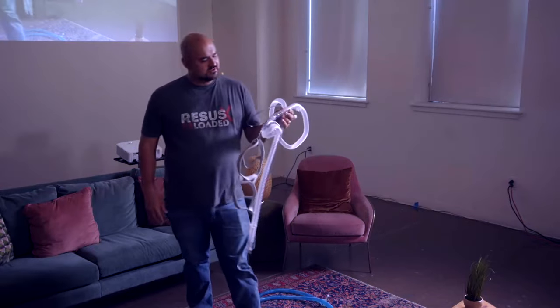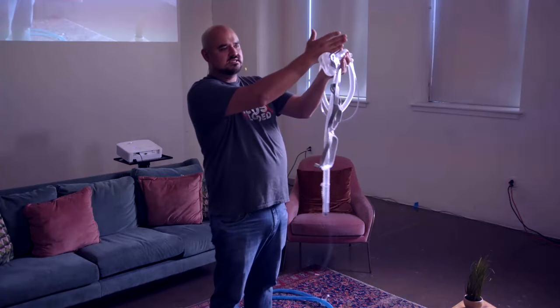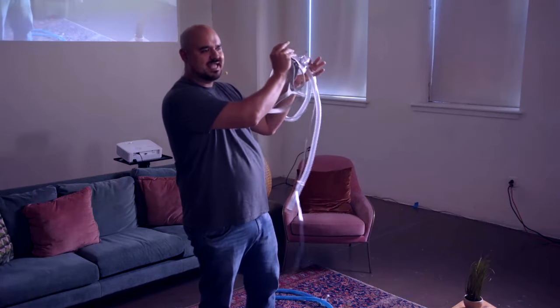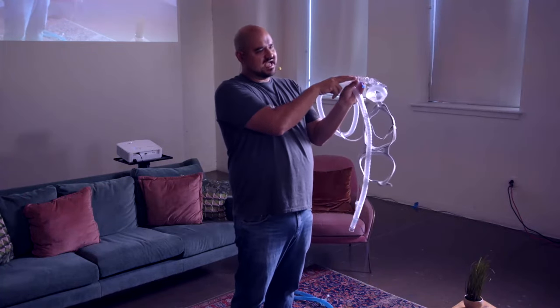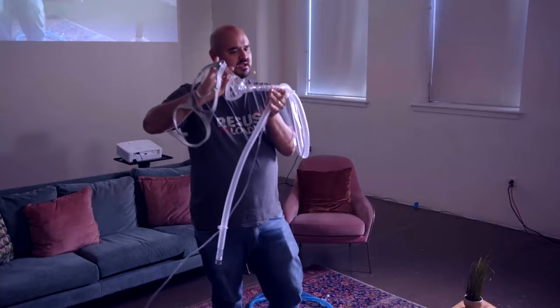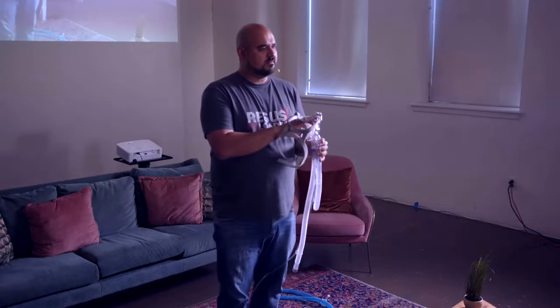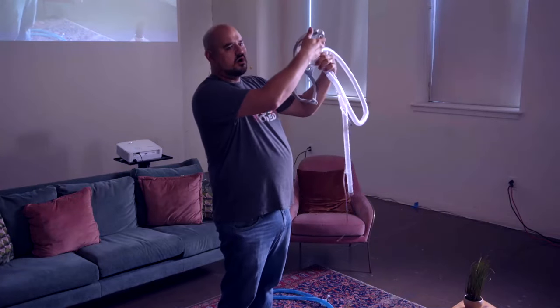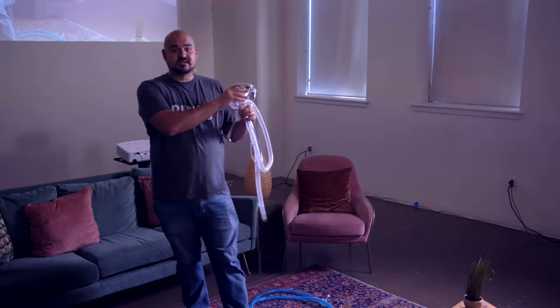There was a fear that all the equipment distal to this hole was becoming mechanical dead space. It's actually not true — when you look at models, the way gas is continually flowing, it's washing out the mask, so the mask is not becoming dead space. But there was a fear of it, and so about 10 years ago, masks started coming out with the exhalation port on the masks themselves.